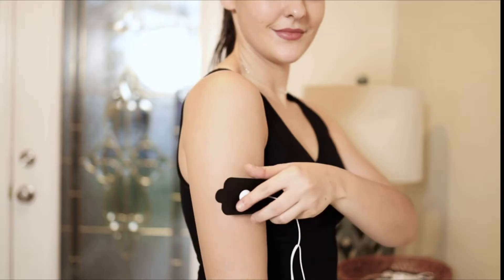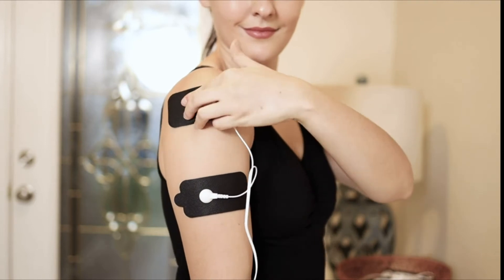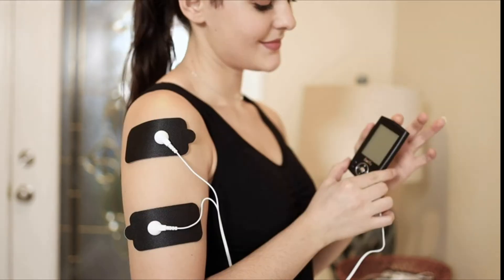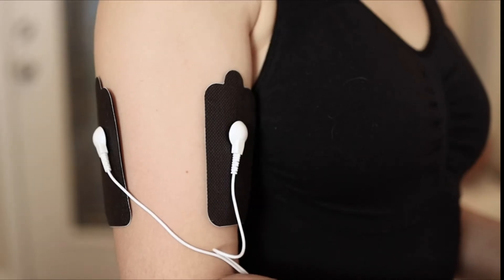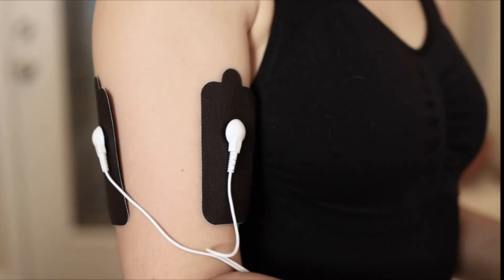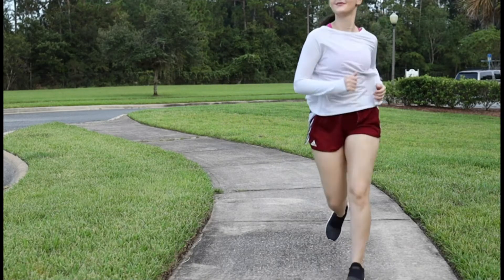If you have any type of pain, such as arm pain or back pain, it can provide you with immediate relief. It is just like a natural process as it is done by your own body. It helps with reducing the pain by stimulating the nerve ends.